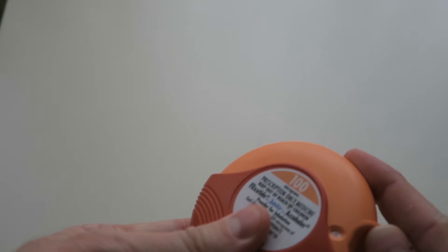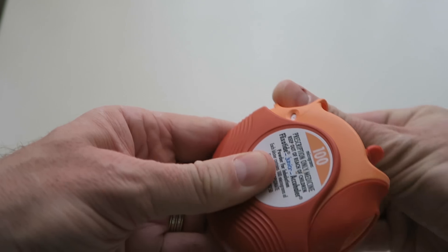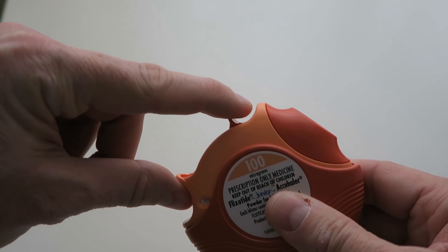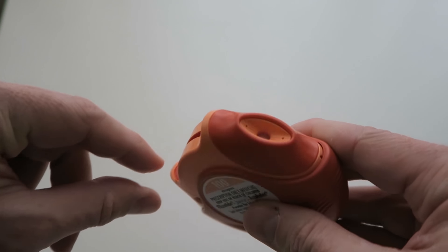So we're going to crack this open and have a look. Normally for use you would spin it open like that. Got a little mouthpiece here, and to release one dose of medication, push that down.